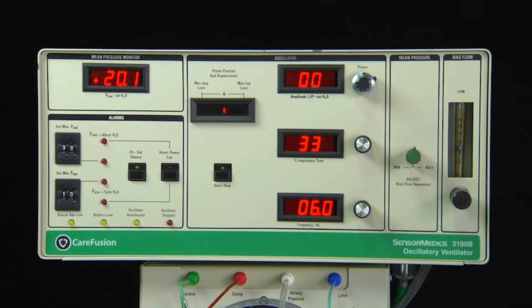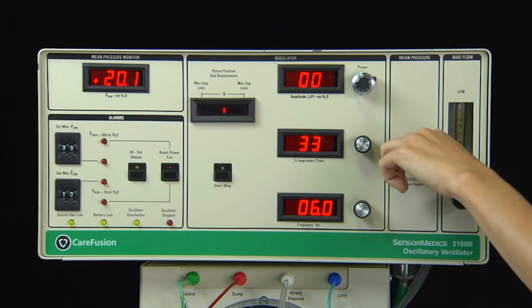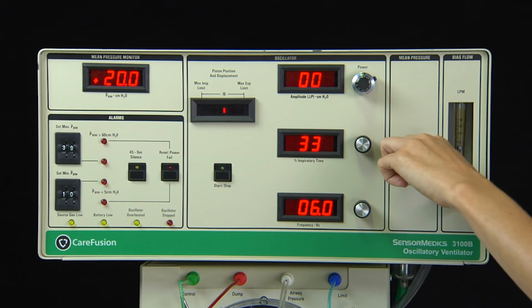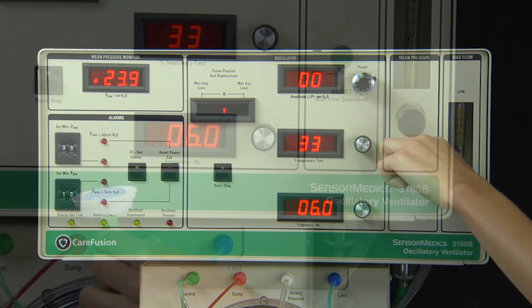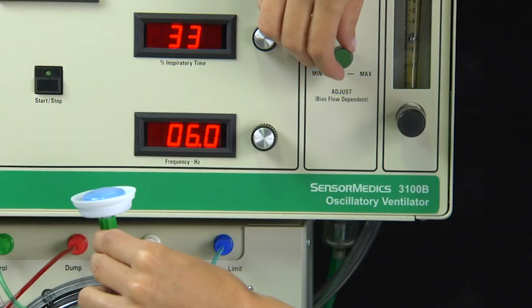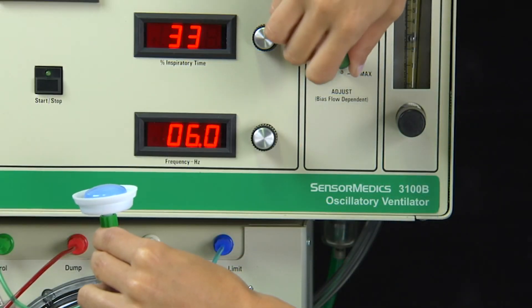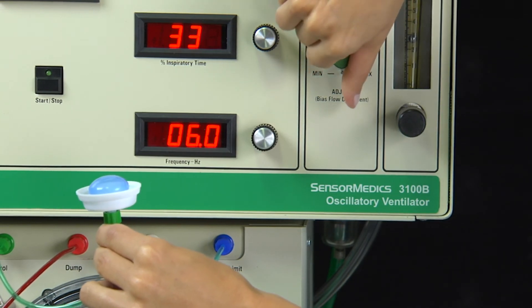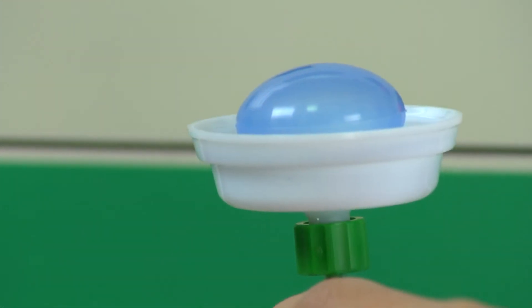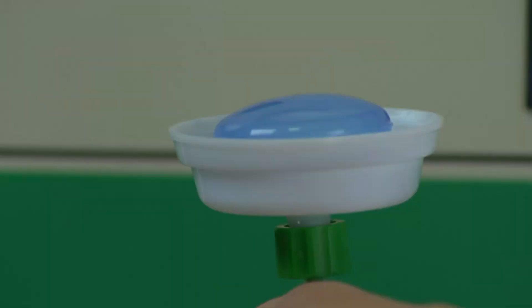The knob on the front of the instrument labeled adjust controls the mean airway pressure. Manipulation of this control changes the inflation of the balloon valve on the expiratory limb of the circuit, resulting in changes to the mean airway pressure.